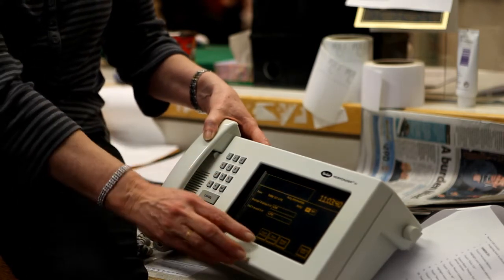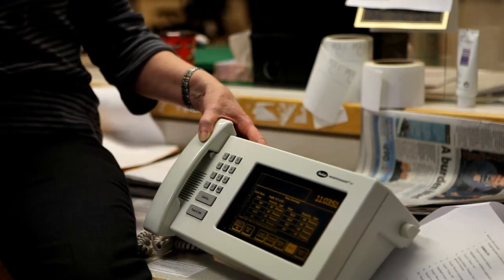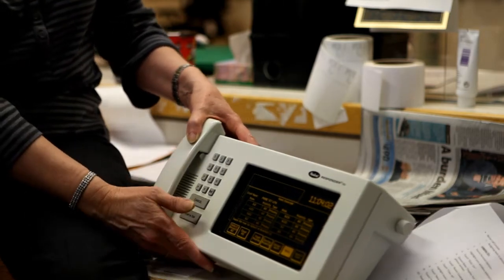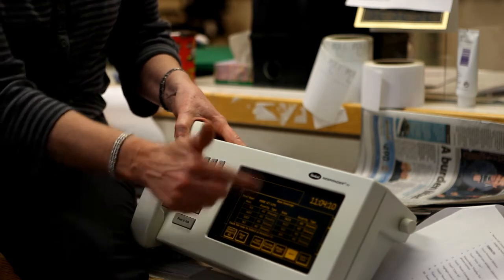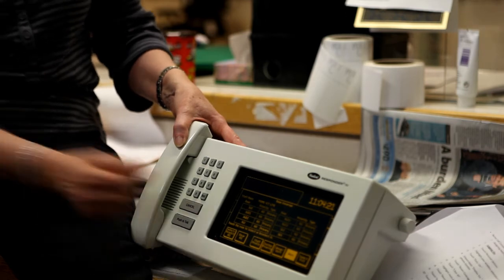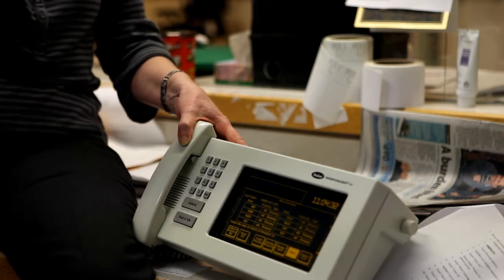Once you've established that, the next thing you do is go into room coverage. By touching on that, you will have a list of all of the room numbers pertaining to the unit that you're on. The scroll-down screen uses a button that says 'more' — you will only get eight rooms at a time, and there are 36 or 40 room numbers that have the nurse call in them. The residents have a room number: three is the floor, 60 is the room, and then you'll either have bed one, bed two, or bed three, which is the location inside the room.